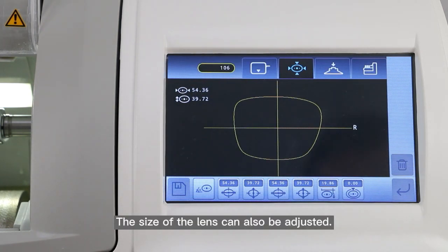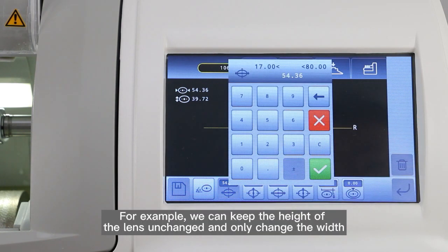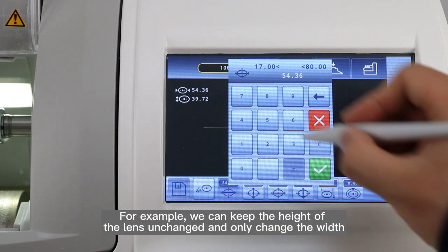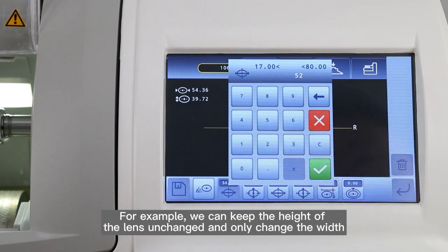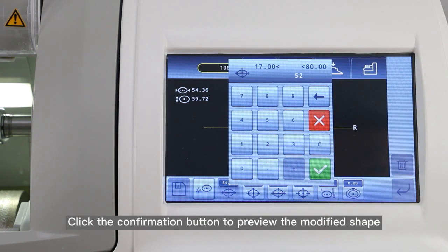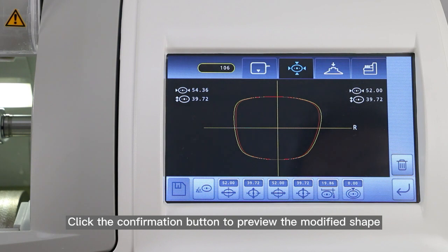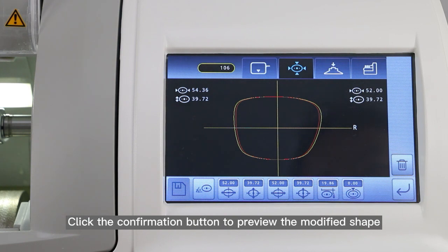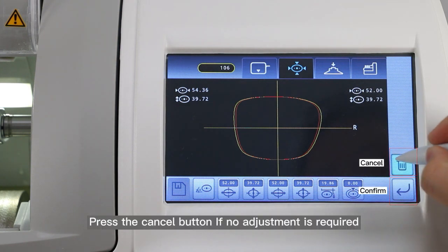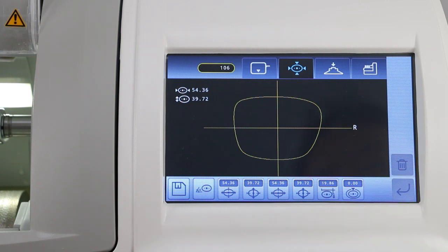The size of the lens can also be adjusted. For example, we can keep the height of the lens unchanged and only change the width. Click the confirmation button to preview the modified shape. Press the cancel button if no adjustment is required.